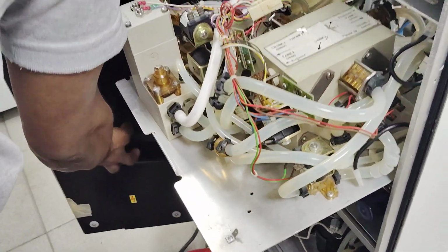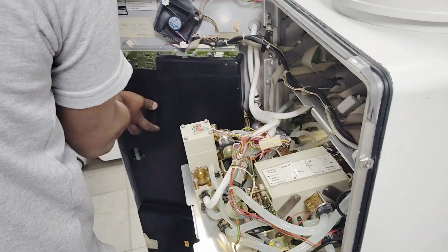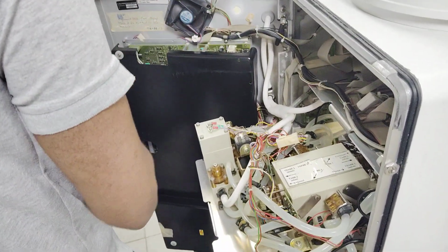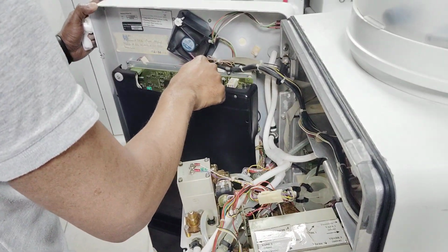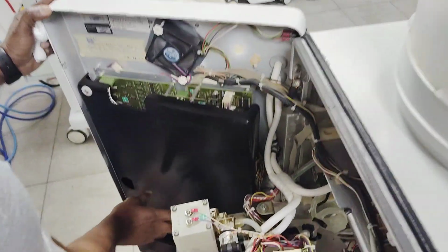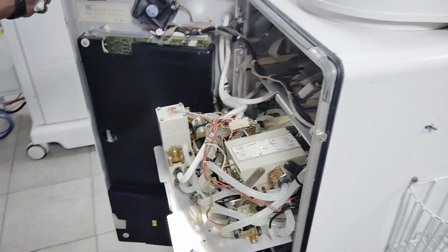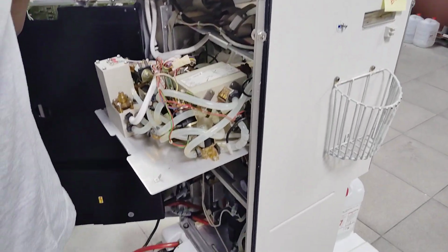Here at the back side, this is the SMPS, switch mode power supply. Then there is one board here, the control board completely, and there is the supervisor board. Then power board 1, power board 2, and this is a cooling fan, and there are small boards placed. This is also one separate board, the bicarb board, and small boards for temperature and others. There are cables and everything. To take the main power from the SMPS, we deliver the main power.